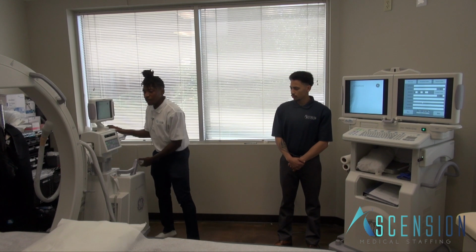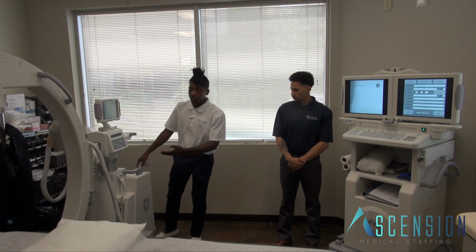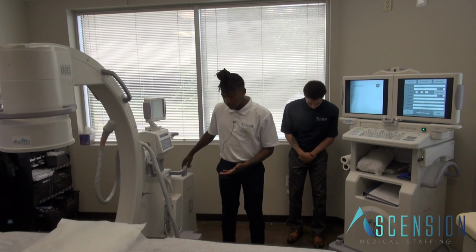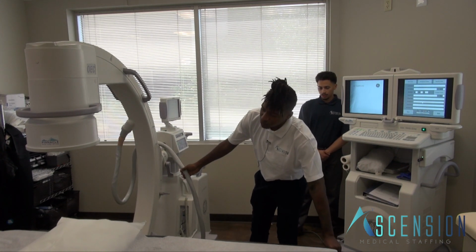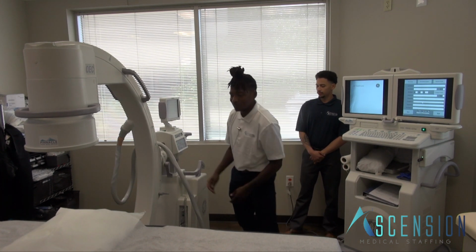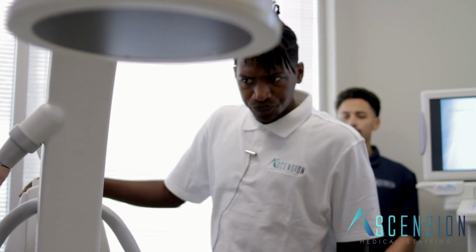And from there, we can transition to something in the lumbar spine. It's as easy as pulling the machine over down this way. You always want to watch at the bottom here because you can bump into things. So as RTs, we always play with the table and the machine a little bit. Then you're going to line up for anything that's lumbar spine, down here towards the foot of the table.